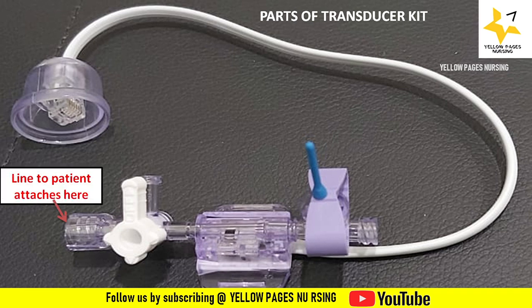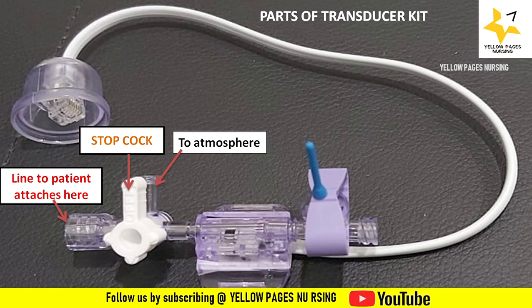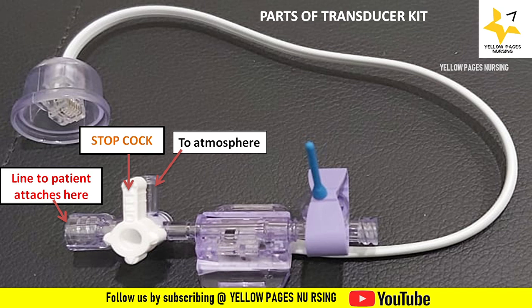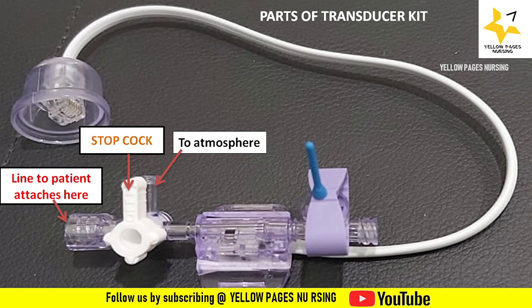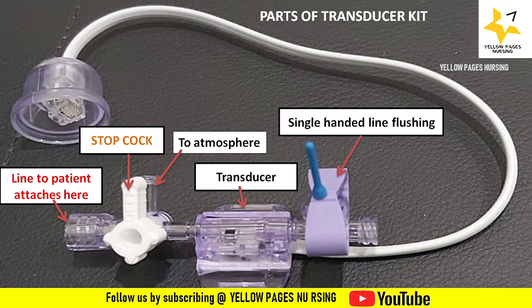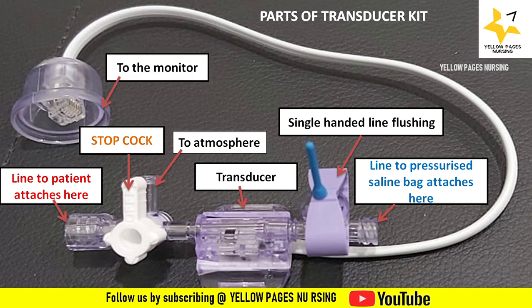This is the image of a transducer. The upper point is where the arterial line is attached via the PM line. The stopcock has a word 'off' — when turned in the direction shown, it indicates the stopcock is off to atmospheric air, meaning the arterial line is open to the transducer. Next to the stopcock is the transducer, then the single-handed line flushing point, and finally the point where the pressurized saline bag is attached. The white cable connects to the monitor.